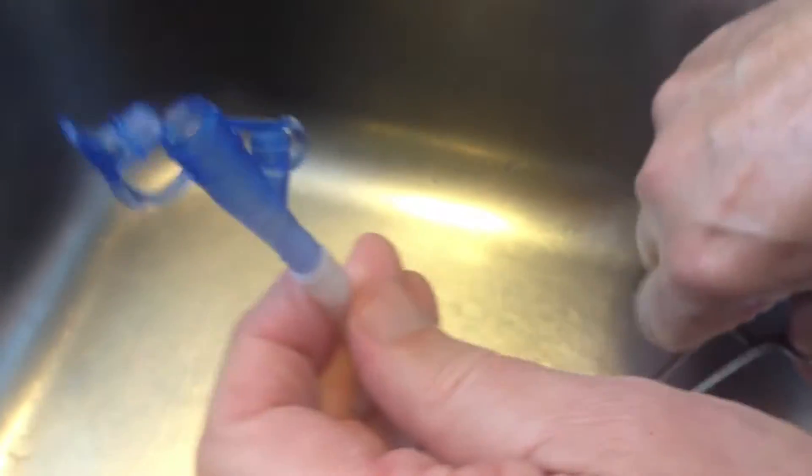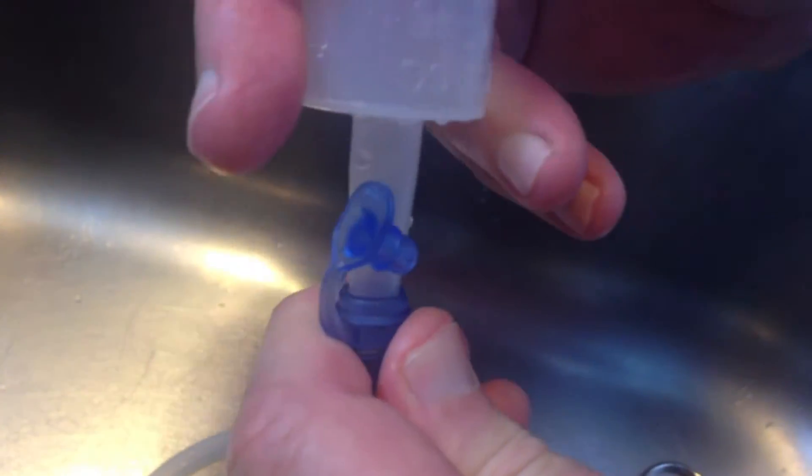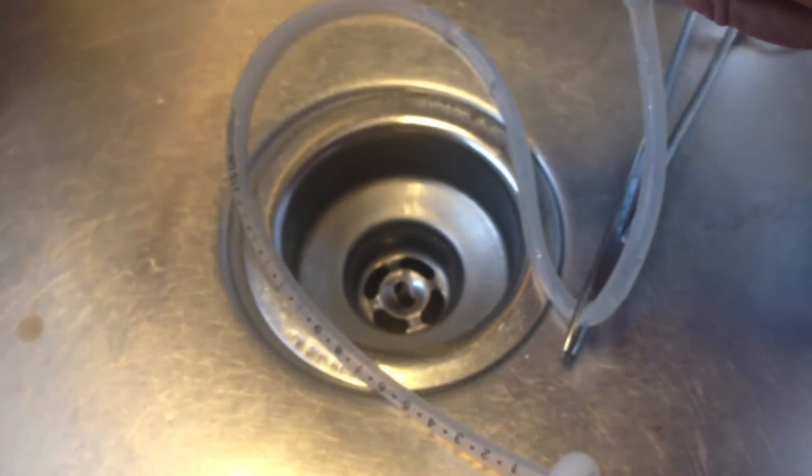I will next hemostat off the tube to close off the tube to flow. I will next be attaching a typical catheter tip syringe, and we will now determine, using standard formula, how long it takes in order to be able to administer 60 cc's of formula.